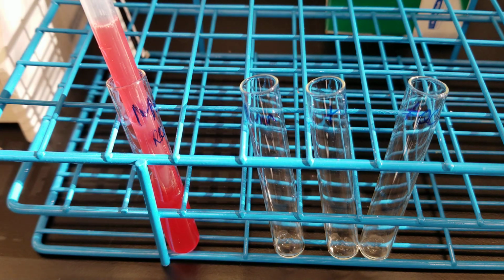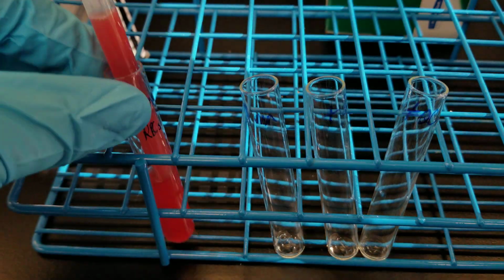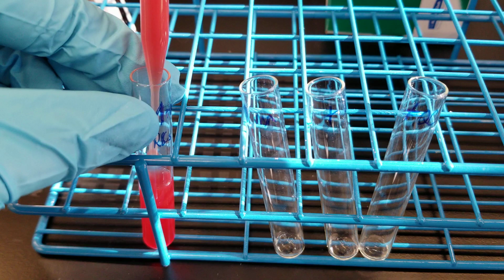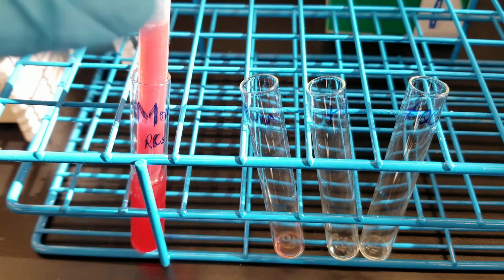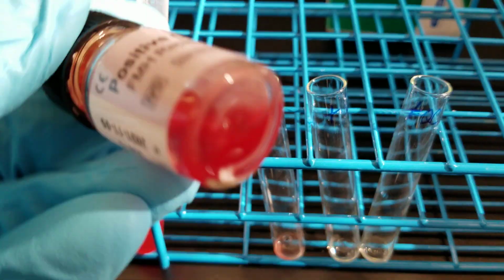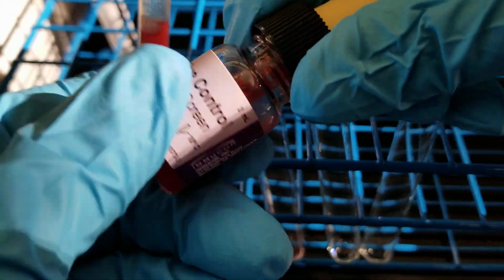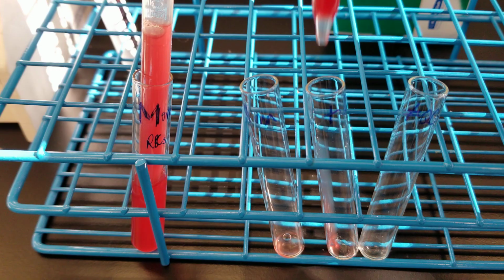Remember, anytime that you are doing this, you should be running the QC right with it. All right, so the next thing I'm going to do is add a drop of my beautiful red cell suspension into the patient's tube. Okay, just one drop. And now I'm going to add a drop of the positive control to the positive tube. So again, make sure you don't have cells down there. Gently resuspend. Okay, so positive control is in the middle. That's one drop.